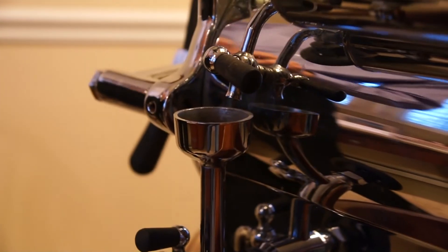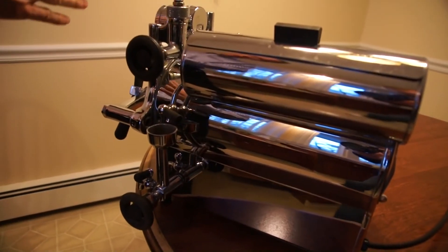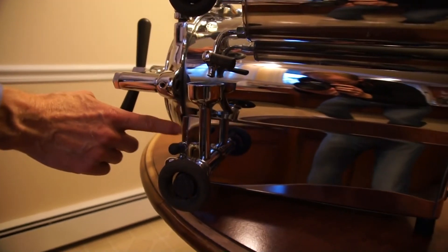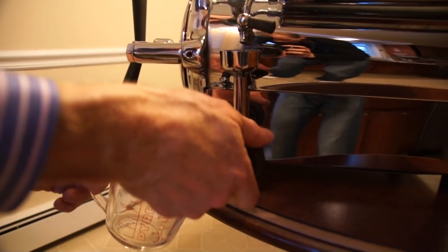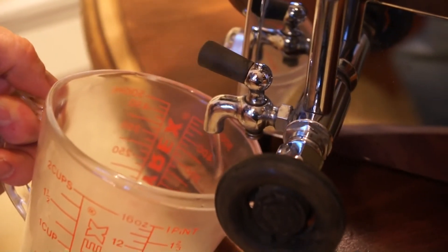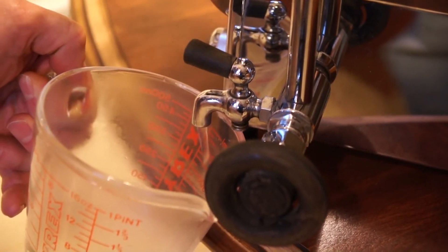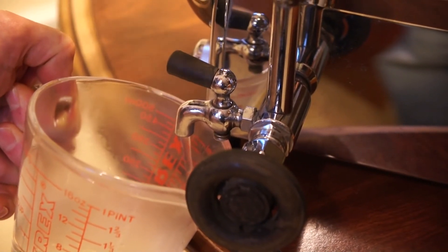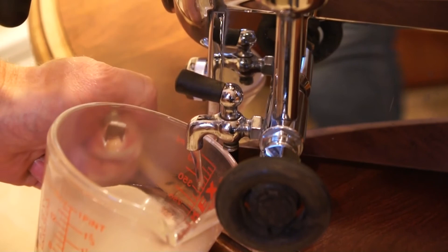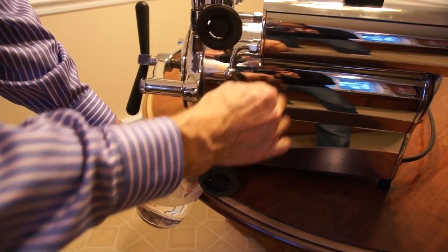Now I'm going to show the technique of emptying the water from the sterilizing unit. We have the upper reservoir that contains water — when we opened the valves, the boiling water went back into the upper reservoir. We still have some water inside the outer chamber, so first we'll open the right lower valve and turn the faucet open, and this will drain. This water is still boiling since we just completed a sterilization procedure. This is important to do periodically because even though you're using distilled water, you can build up some deposits. And if we want to, we can also empty what's in the upper reservoir by opening the upper valve and this faucet here.